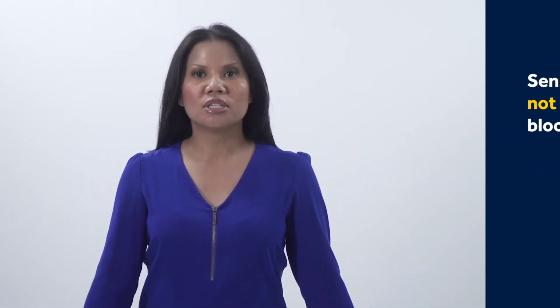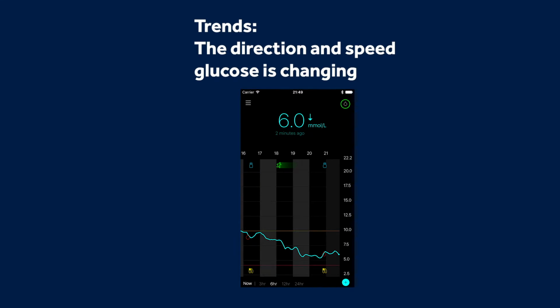When you begin using CGM, it'll be more important to focus on your sensor glucose trends instead of the single number. Your trends will show you the direction and speed your glucose is changing. The Guardian Connect app displays your current sensor glucose value on the home screen, but it also shows you your glucose trends in two ways, as a sensor graph and as arrows on the screen.